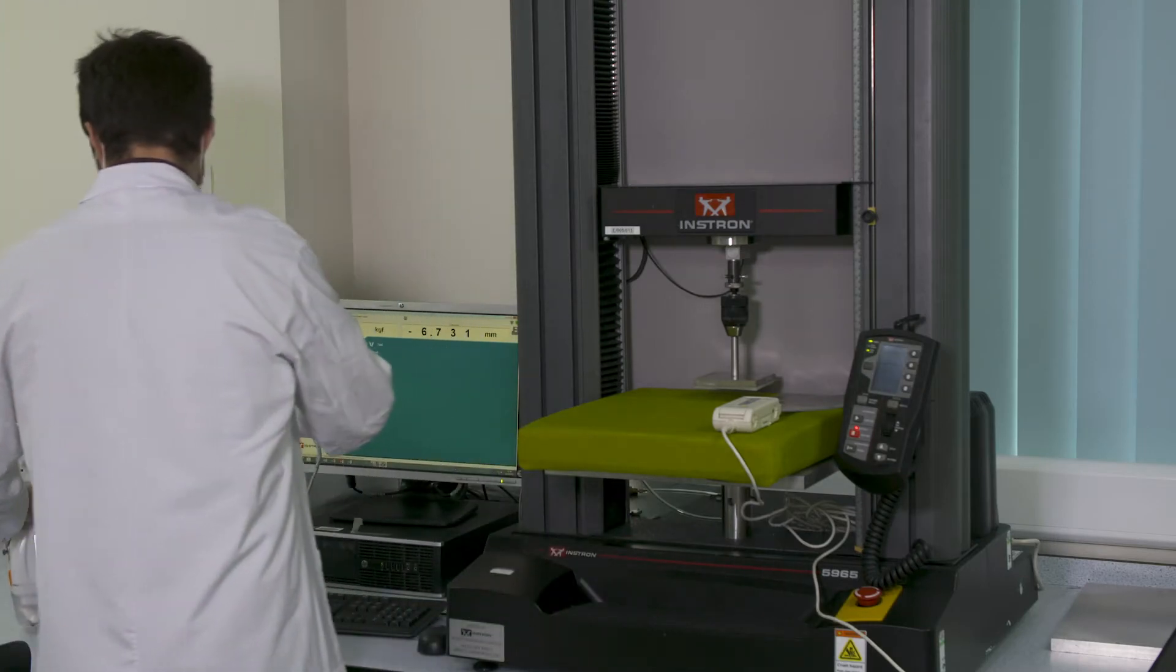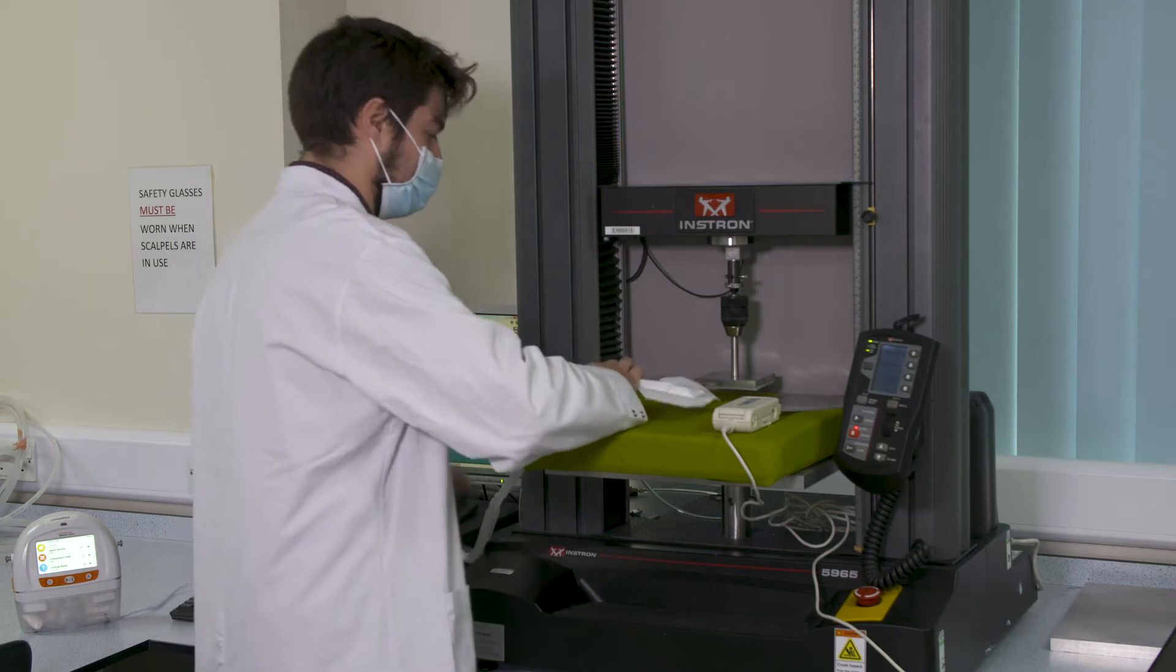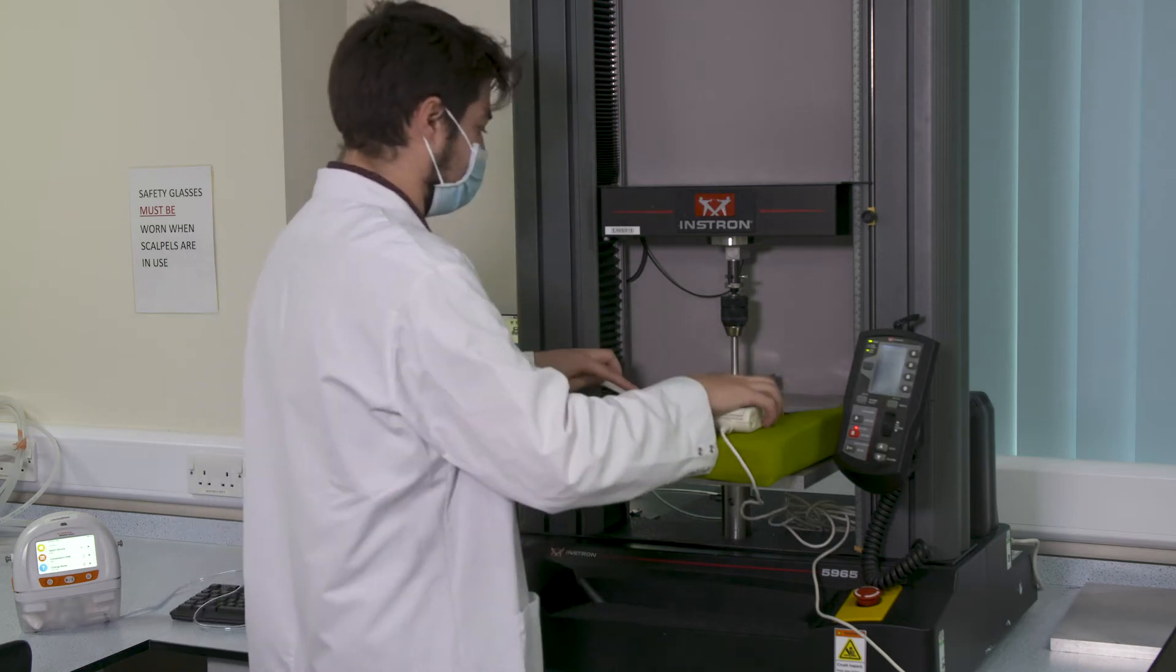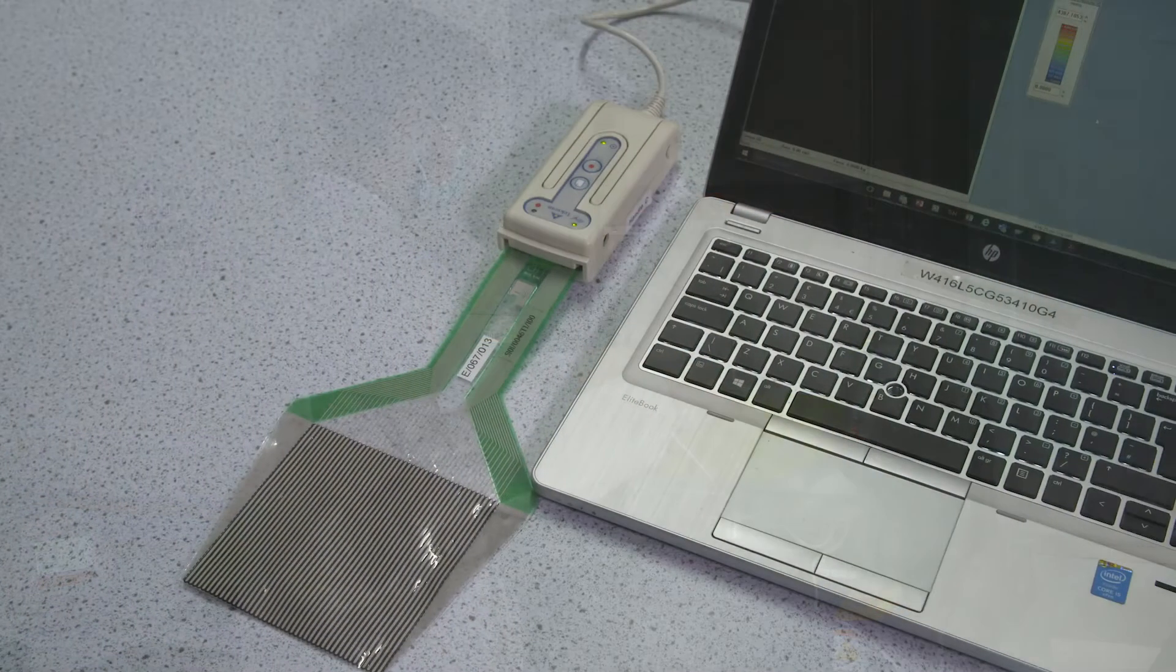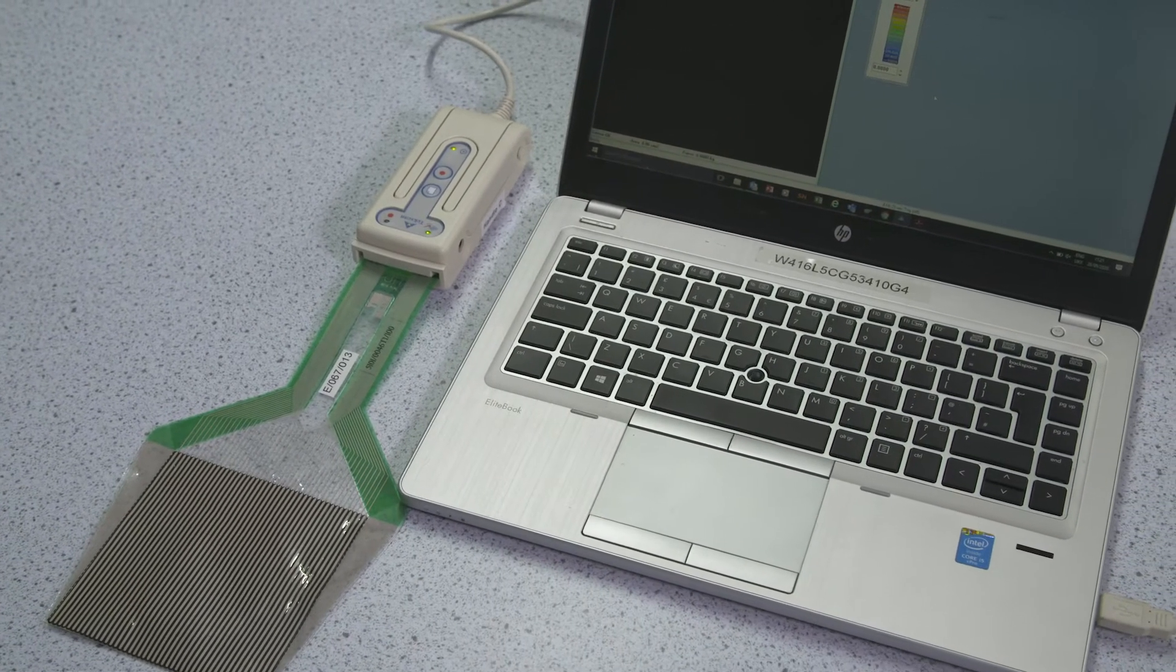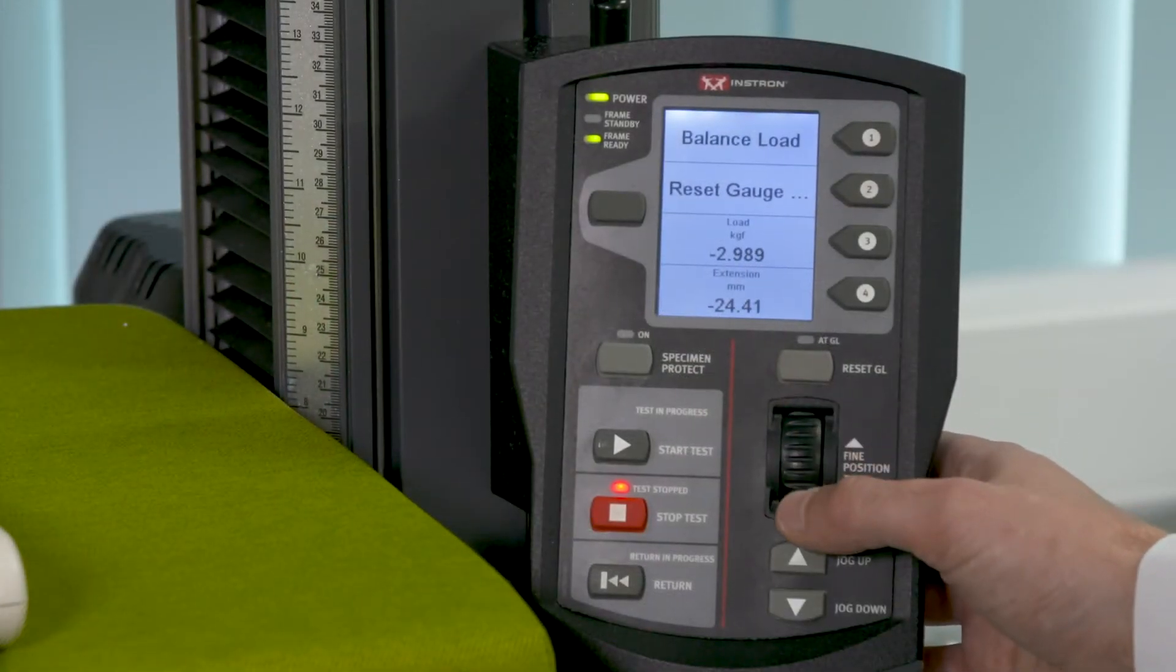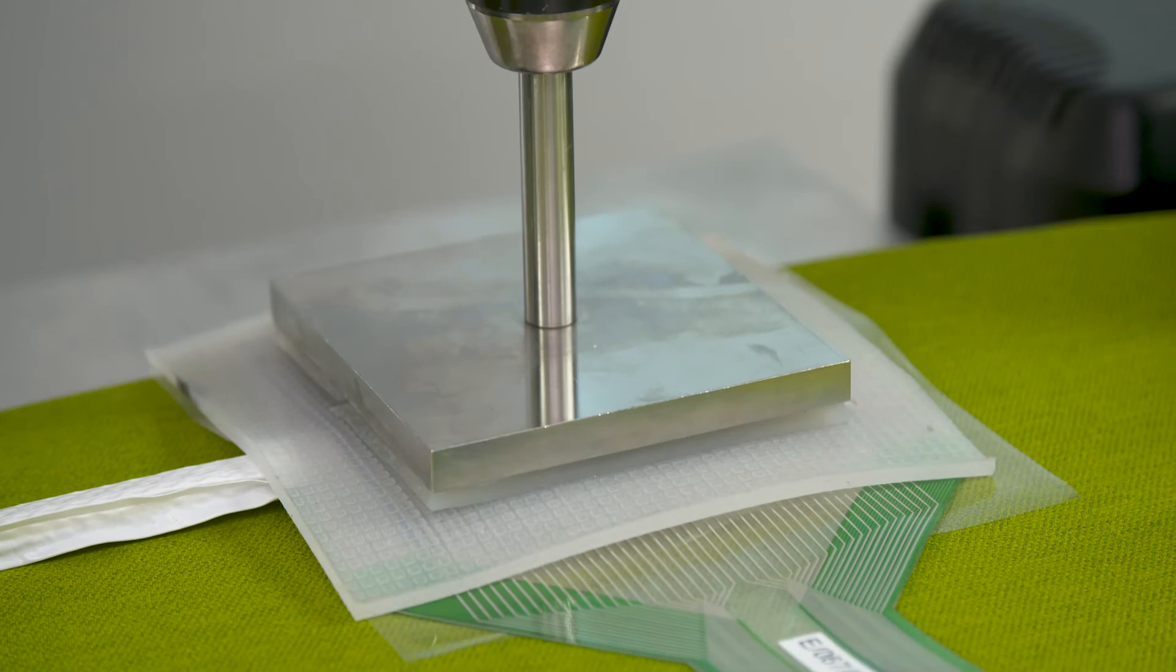Our testing will demonstrate how the introduction of Renesys softport ensures patient comfort and tolerability while treatment is maintained. Using sophisticated equipment, we show that Renesys softport transfers low levels of pressure to simulated skin that may help reduce the likelihood of pressure points.